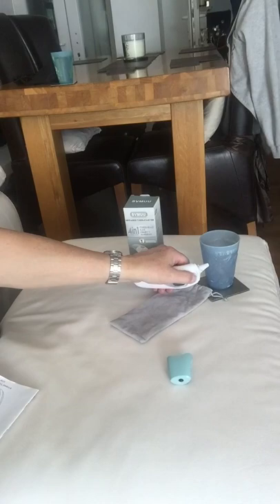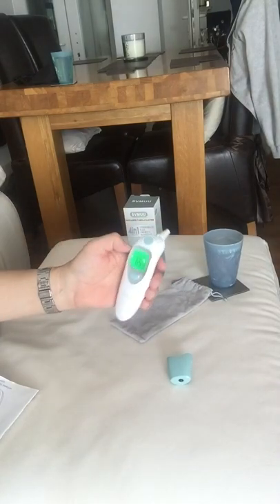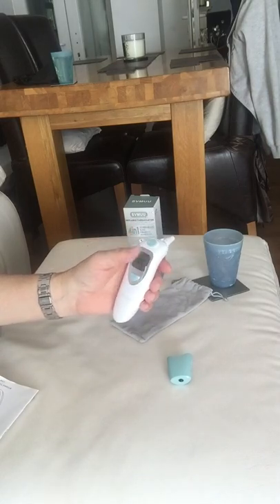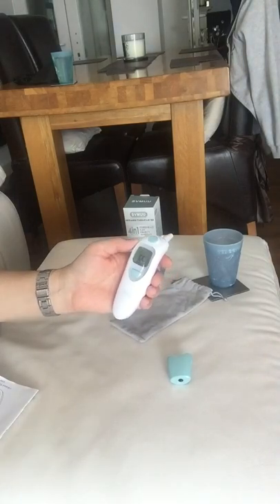Let's see what this glass is here. That's a cool beer or water — 65.3. So if you've got a baby and you want to check the temperature of a water bottle, you can do it with that.